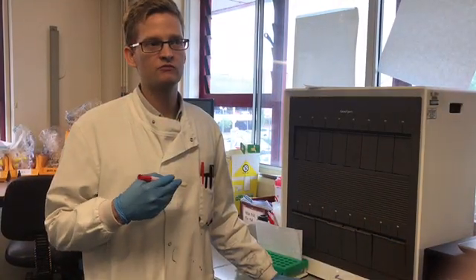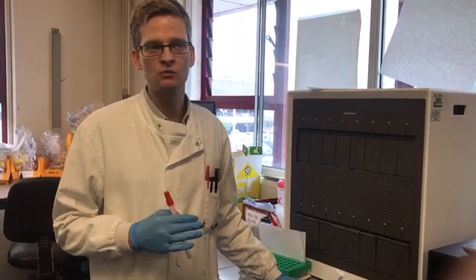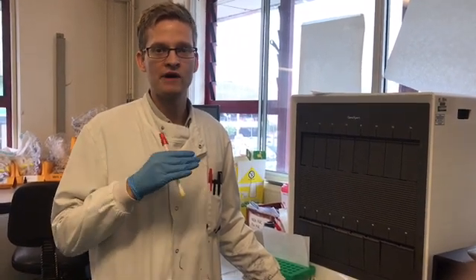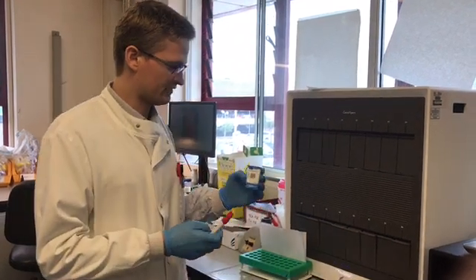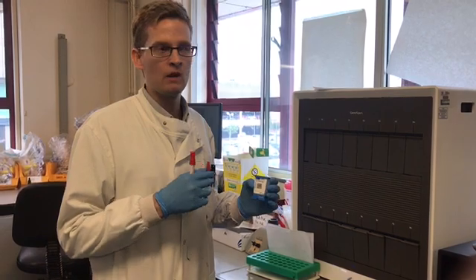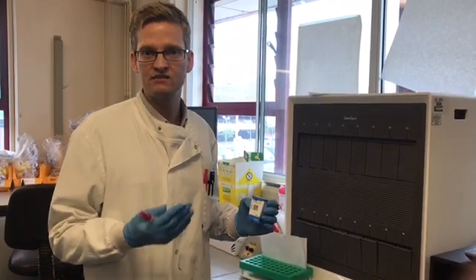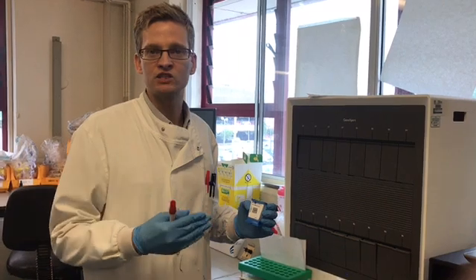We've been relying on agar culture for about 150 years now and not much has really changed in that. But with technological advancements, we've moved into areas of looking directly for DNA of bacteria. What this machine here does is a very quick analysis looking for the literal DNA of bacteria, and this will give us a result not in 24 hours but within hours. We typically use this for screening for MRSA, C. difficile, norovirus — things like that that are involved in infection control in hospitals.